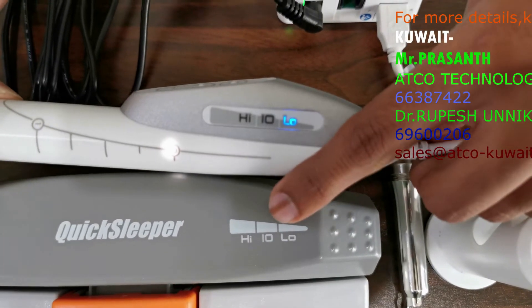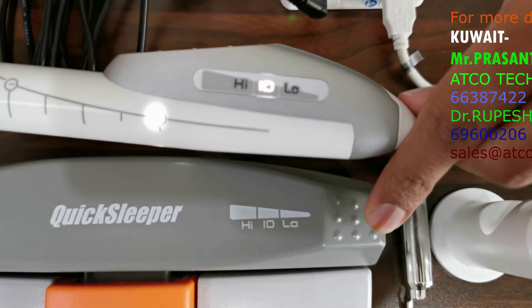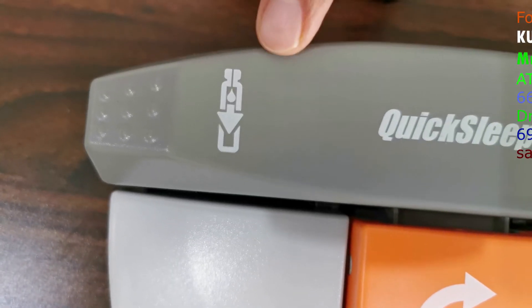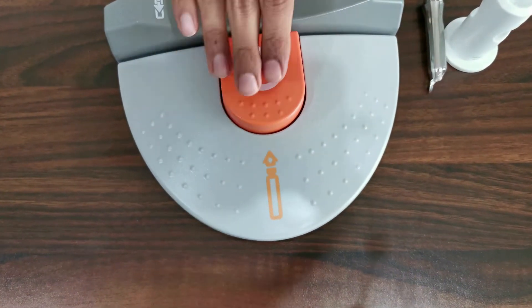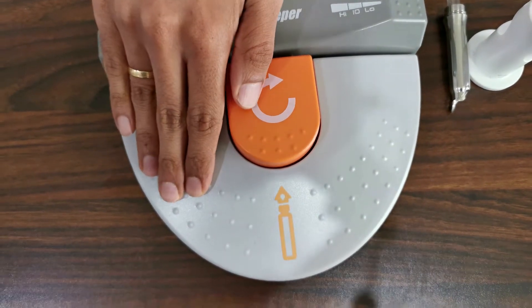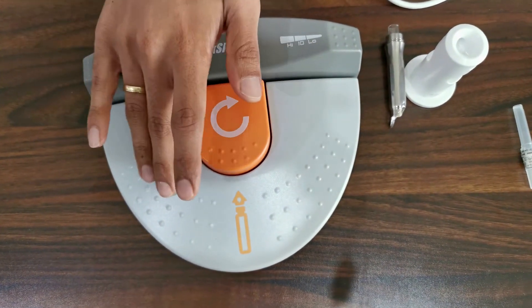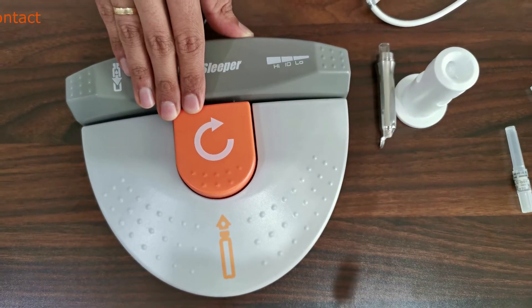Primarily we use it in the I-O, that is the intra-osseous mode. This particular switch is for aspiration purposes, and for our use we are going to be focusing on two switches: this one indicates the anesthesia delivery — depending on your mode you can deliver the anesthesia by pressing this — and this one is for the intra-osseous rotation or penetration.